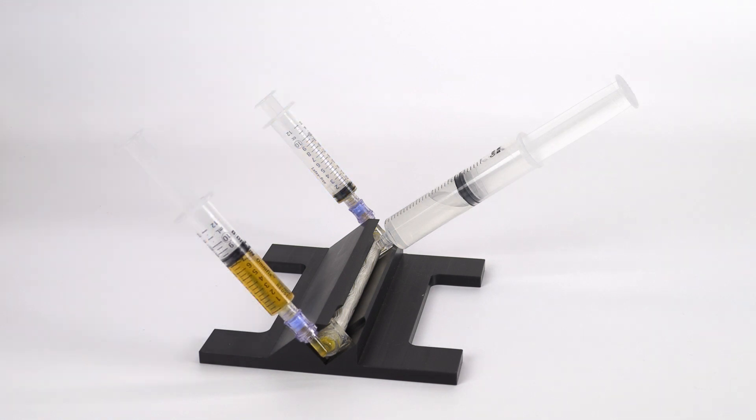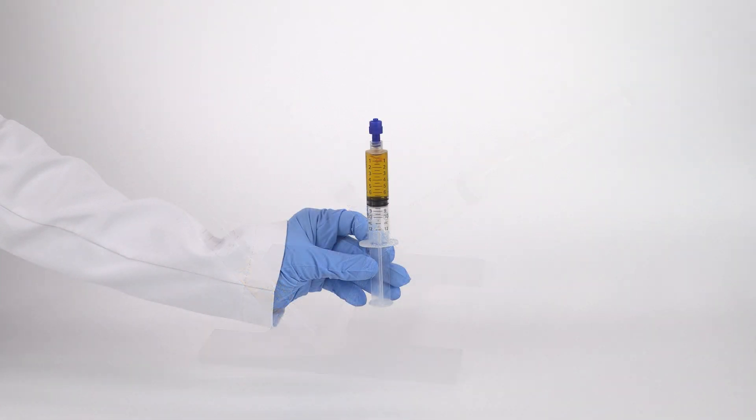Filter until the plasma volume reaches 7 milliliters or the desired amount. The final solution is now protein-rich plasma.